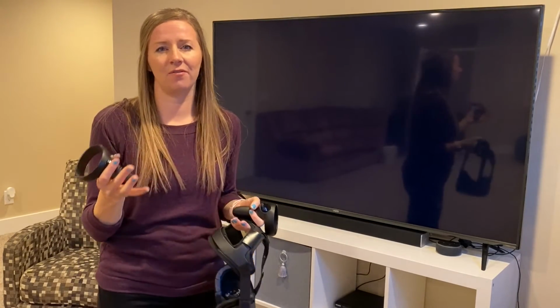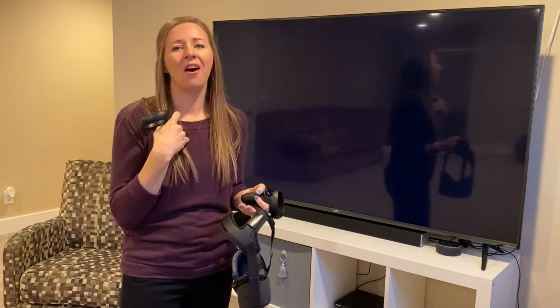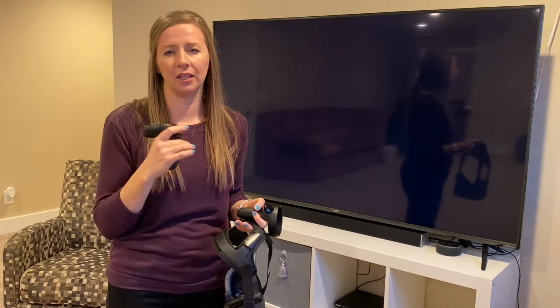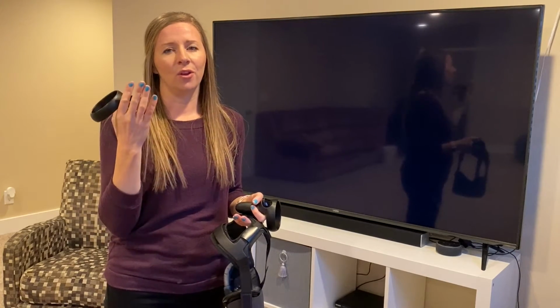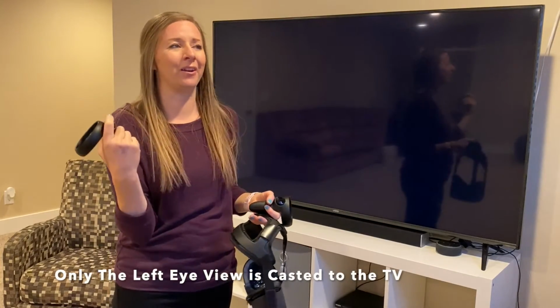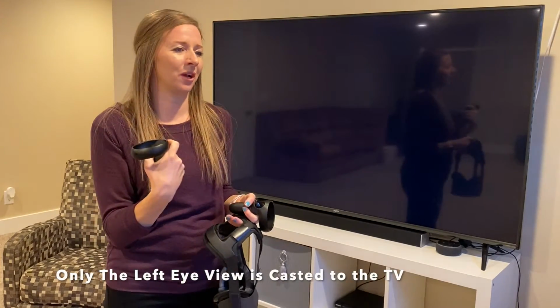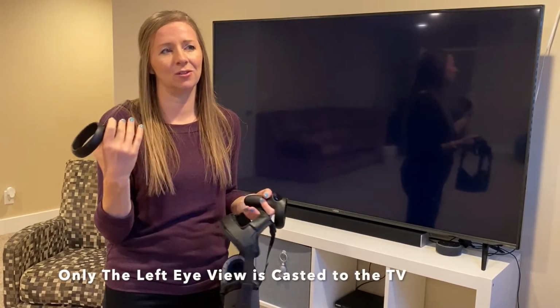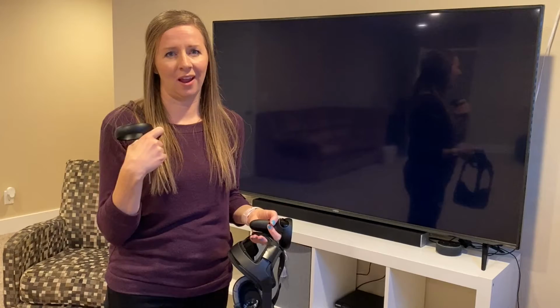It's not going to be very fun to watch, I'm realizing, because all the exciting parts I can only see with my amblyopic eye, I guess you could say. And so you guys aren't going to see all the exciting parts, like the ball that I'm trying to hit with the paddle and break the boards, or the spaceship that I have flying, or different aspects like that. So try to imagine that I'm hitting the ball.